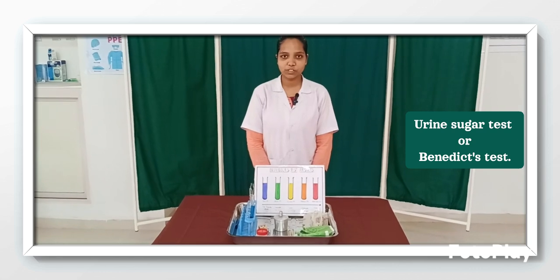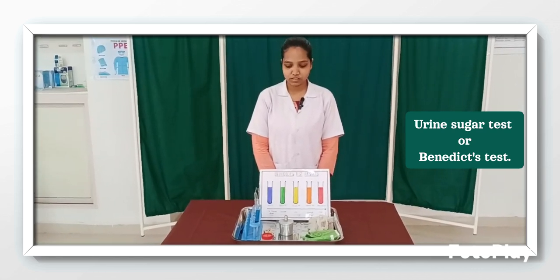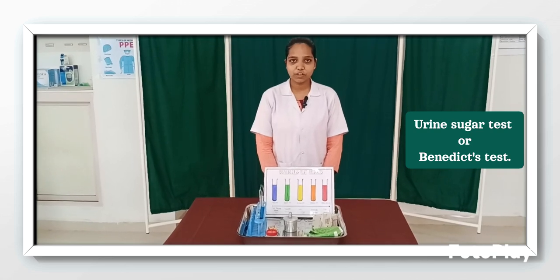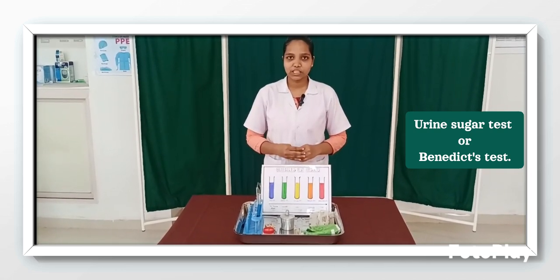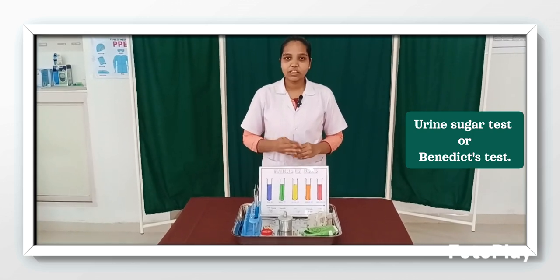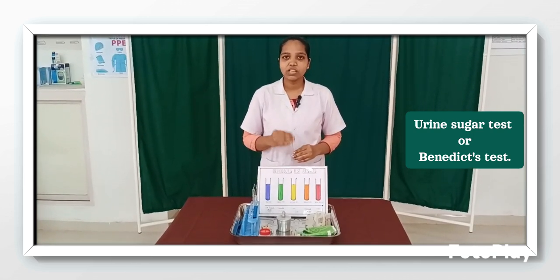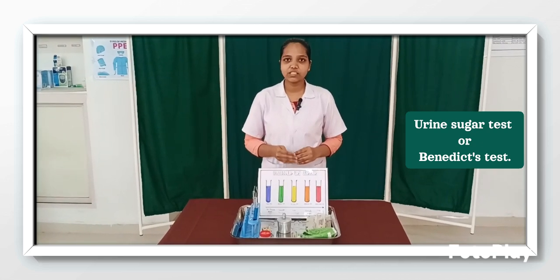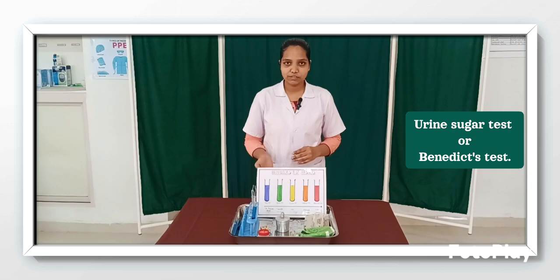Today I am going to demonstrate the urine test for sugar. It is also known as Benedict test. So let's see the definition of urine test for sugar. It is a diagnostic test used to check the presence of glucose in our urine. Normally in our urine there is no presence of glucose. If it is present, it may indicate some abnormal carbohydrate metabolism or any renal dysfunction.